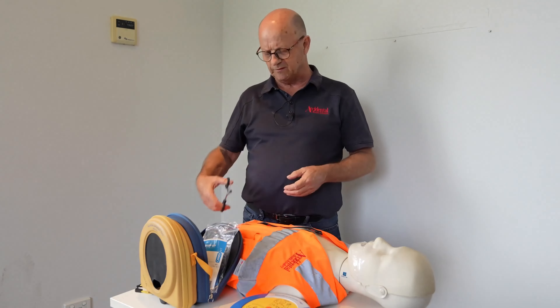When the defibrillator is ready to give a shock, it will say: 'Shock advised — stand clear of patient.' Press the orange shock button now. Shock delivered. All you have to do is press the orange flashing button.